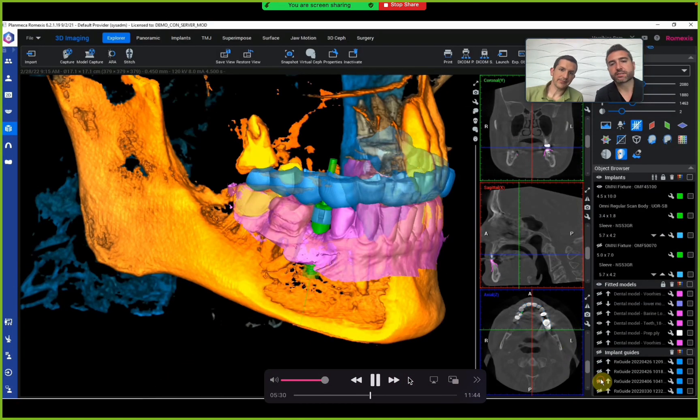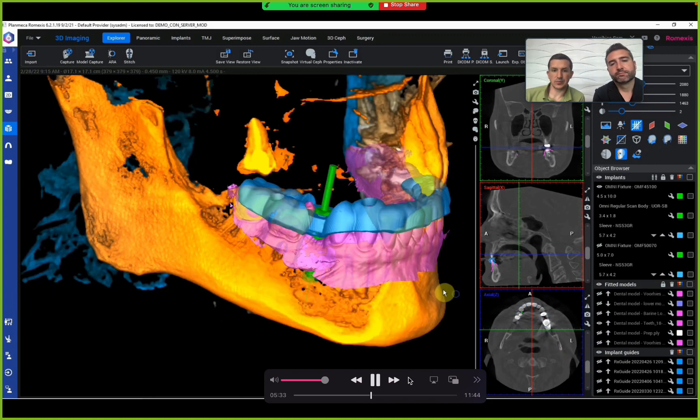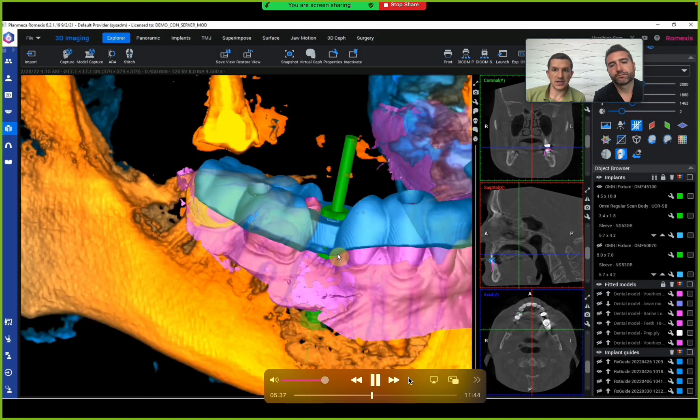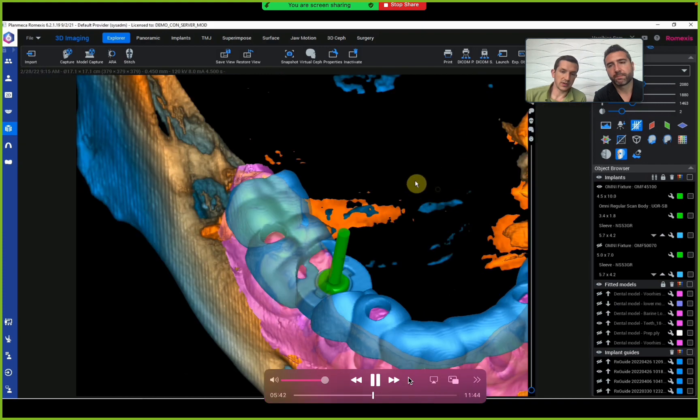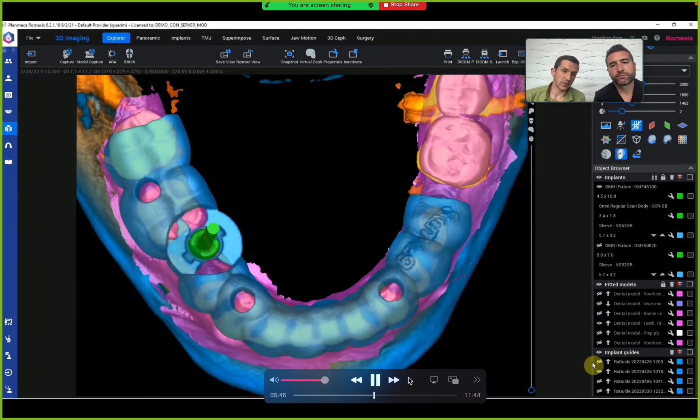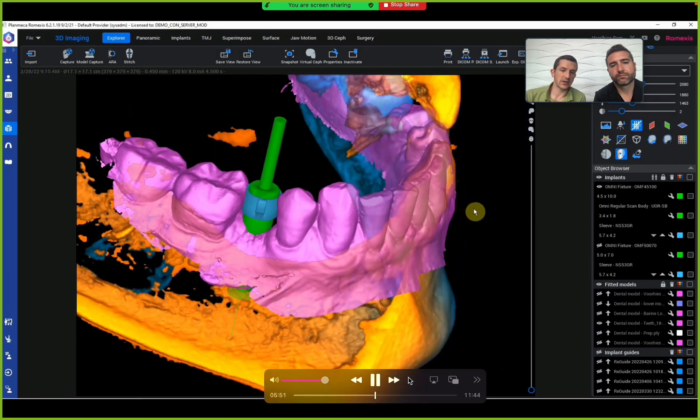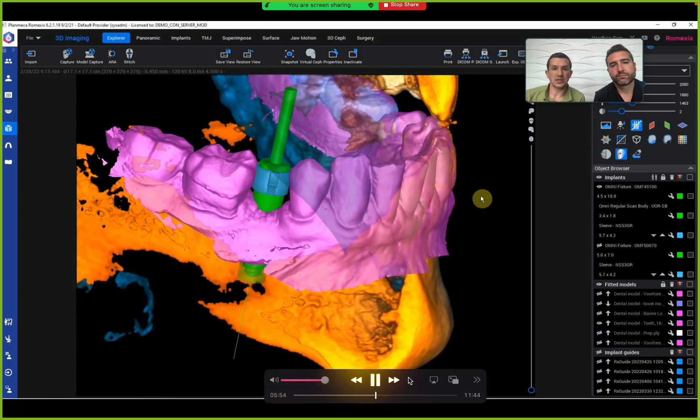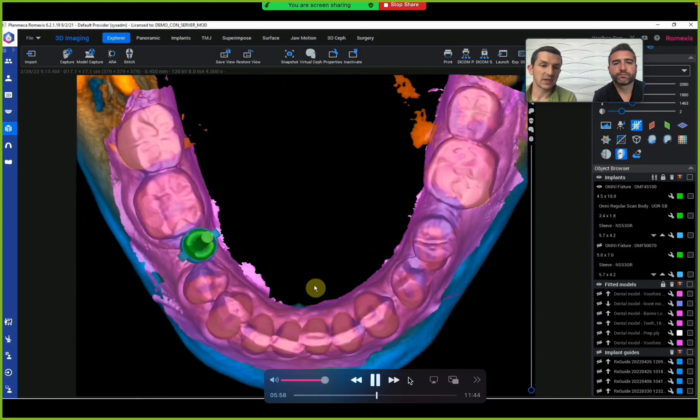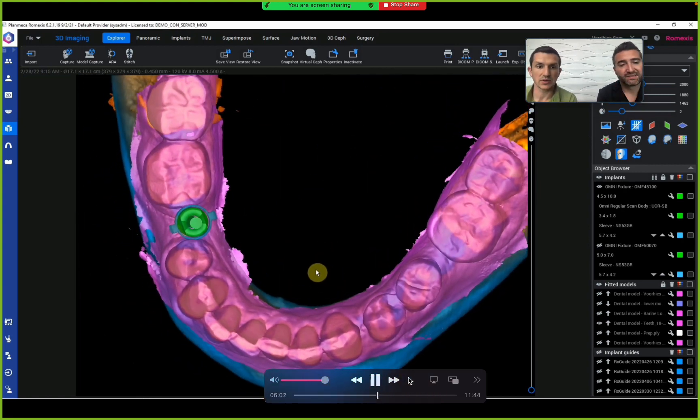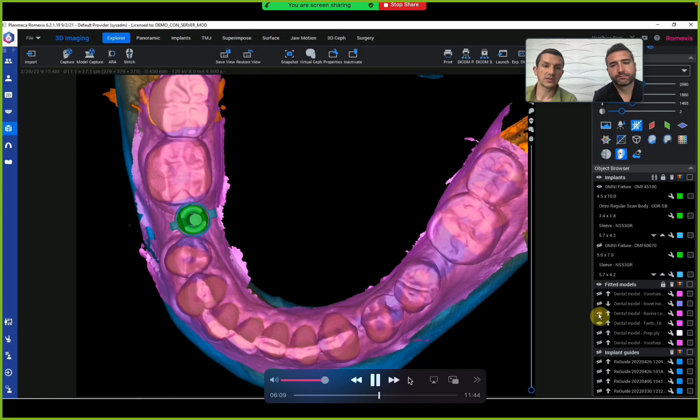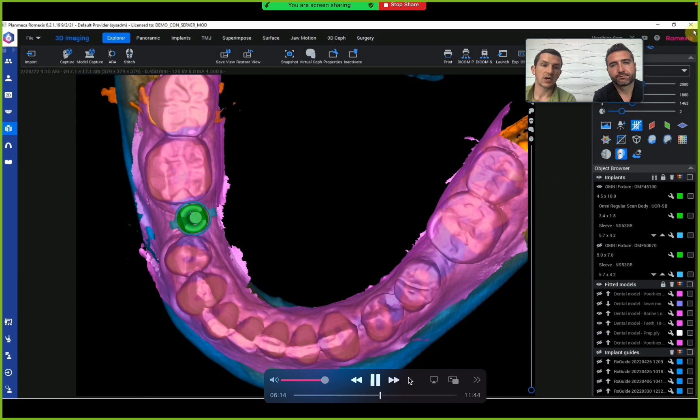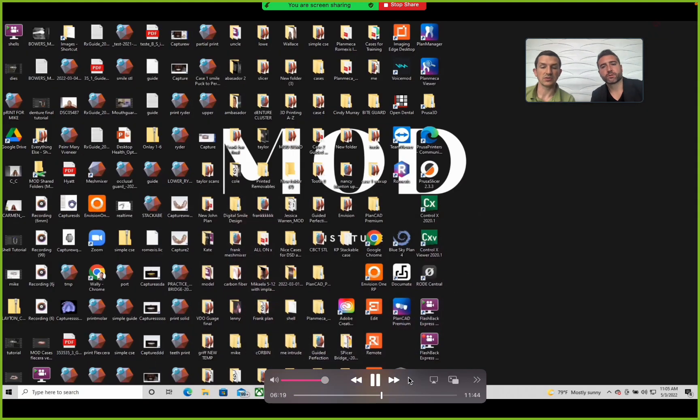So Mike, how did you design this? We did this design in Romexis software. Set up the guide design just like any normal guided implant. Place your implant following all the parameters and guidelines regarding relativity to teeth and vital structures. Then attach the scan body to the sleeve within your guide. Export two files: a soft tissue file, which is the scan without the implant and scan body attached, and the file with the scan body attached. You'll use that when you design the actual custom healer in your digital design software. We like PlanCAD Premium.